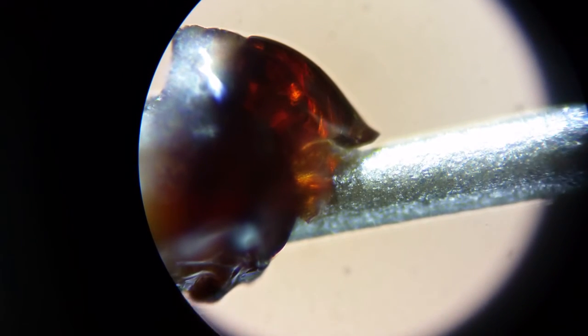All right, so here we've got it zoomed in on the section where this would be the transition point from where the sensor is outside the body to inside the body. I was fortunate as when all this lovely goo was still stuck on this one after I pulled it out to kind of shoot this video.